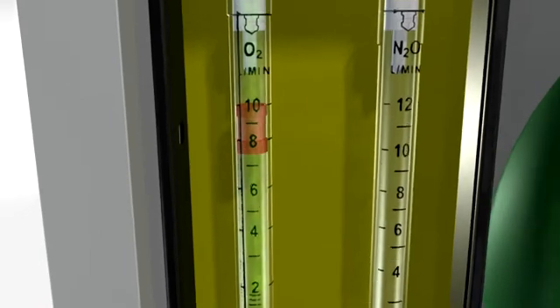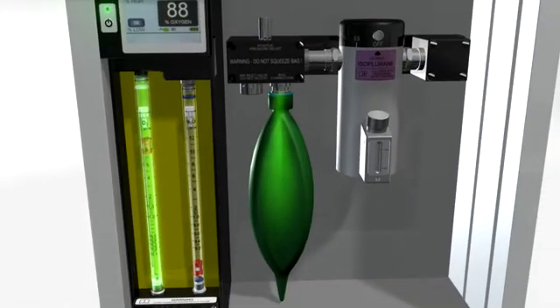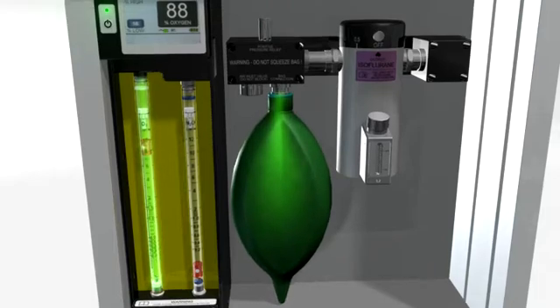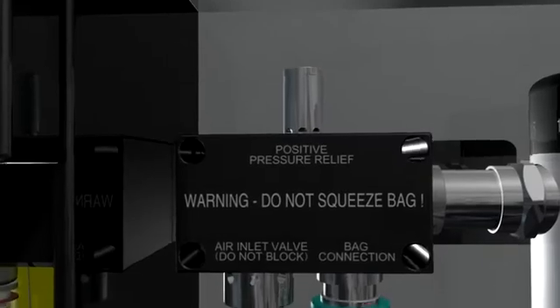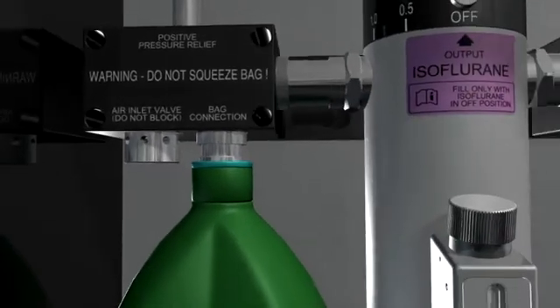The back bar serves 3 functions. First, the reservoir bag stores the oxygen. It holds up to 2 liters. Second, the pressure relief valve limits pressure in the back bar to 5 centimeters of water, protecting the patient from harm. Third, the air inlet valve allows room air to be drawn in whenever the supply of oxygen is less than the demand, as expressed by the patient's minute volume. We'll come back to this shortly.